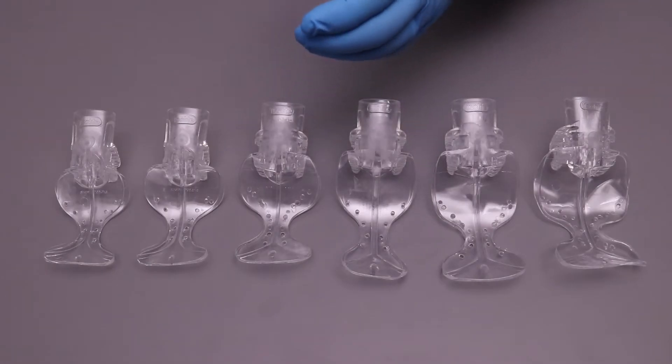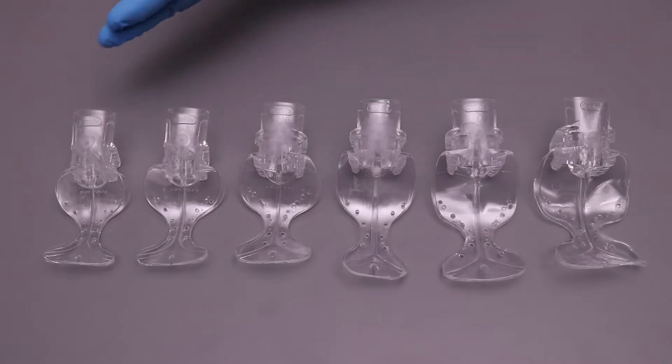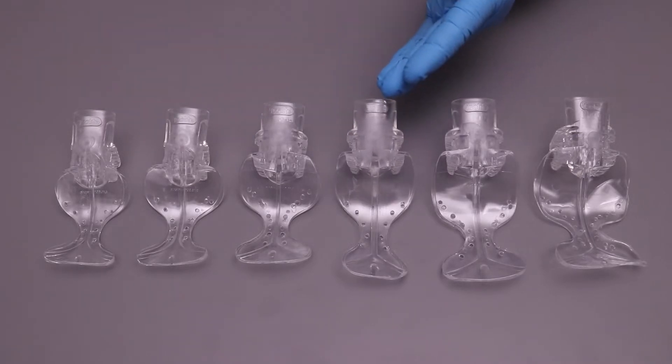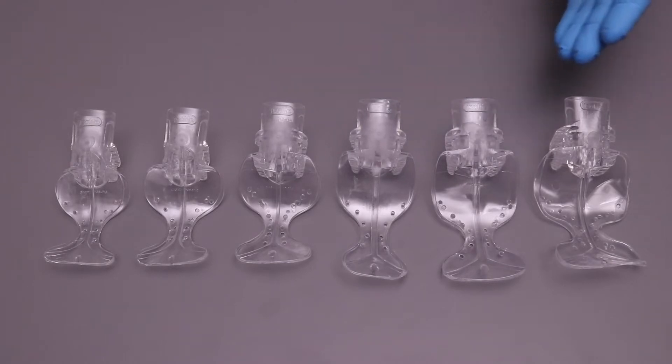Starting with the posterior mouthpieces, there's six different sizes: pediatric, extra small, small, medium, medium-deep vestibule, and large.